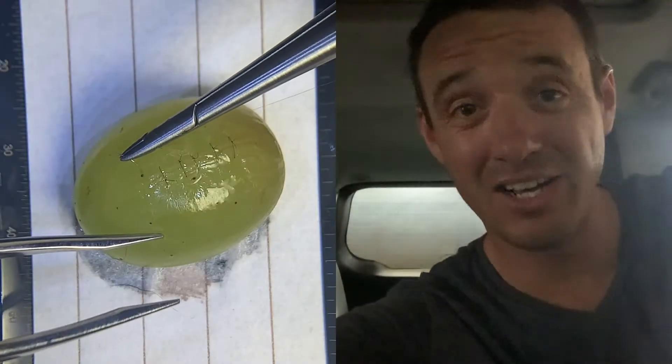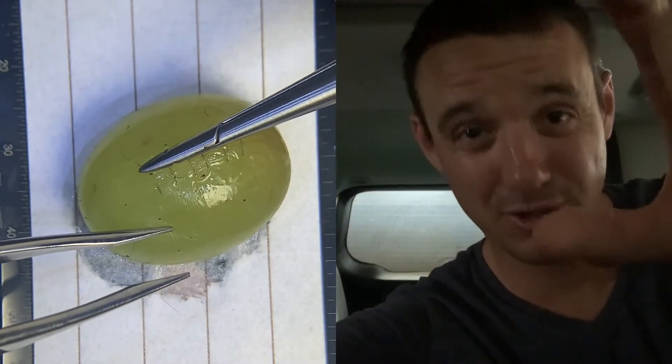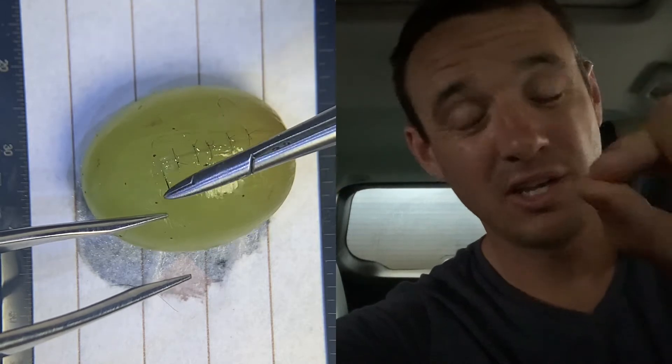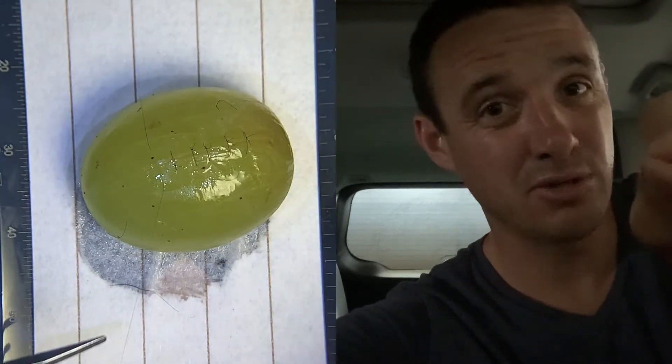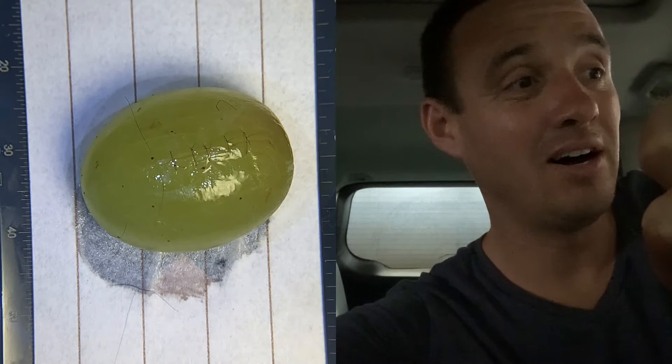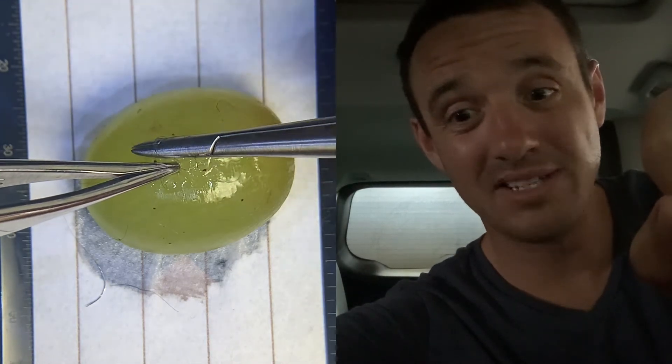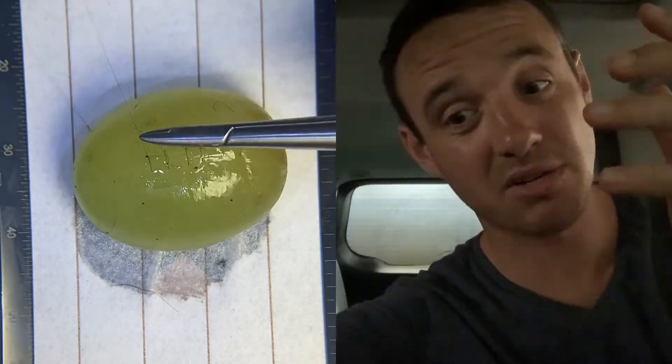OptiWinfo back with another little video. Today's video is a tutorial on suturing with 10-0 nylon — super small, so we're talking microsurgery. The key message is have a script. You need to have a script before you sit down to suture 10-0 nylon for the first time in the OR on a real human's eye. It's going to be a spaghetti mess if you don't have a script.